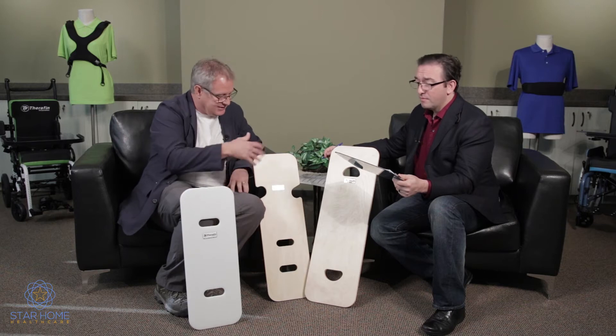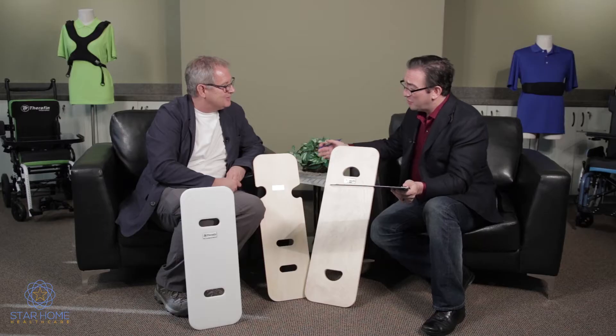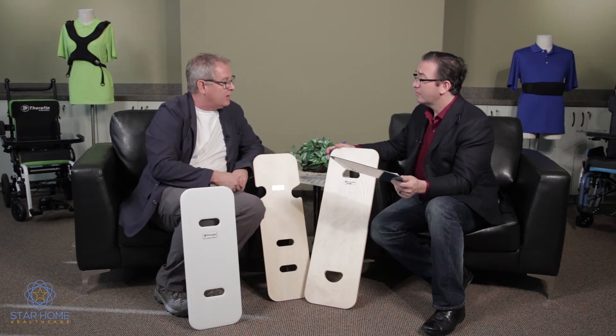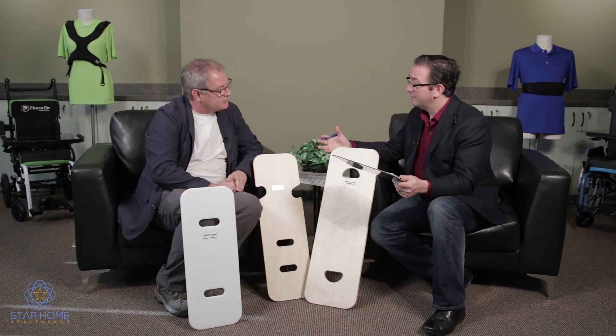There are many different varieties. These happen to be just some transfer boards that you would slide upon. One of the scenarios that comes up a lot is getting to the bathroom. You pull your wheelchair up to the commode, take this specially designed board, get it under your bottom, and it goes over to the commode — it has a nice round lip and you just scoot off. It matches the toilet exactly.